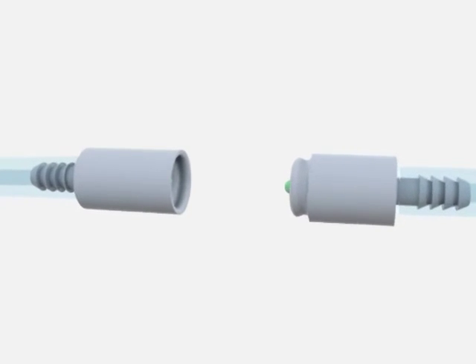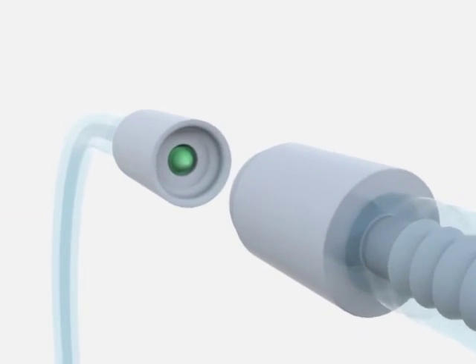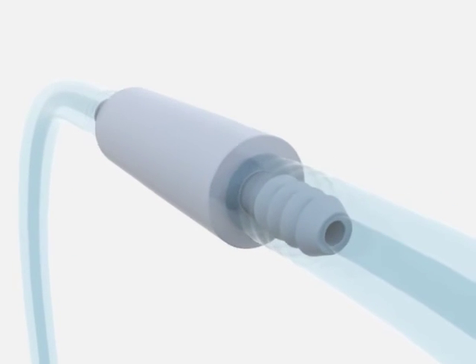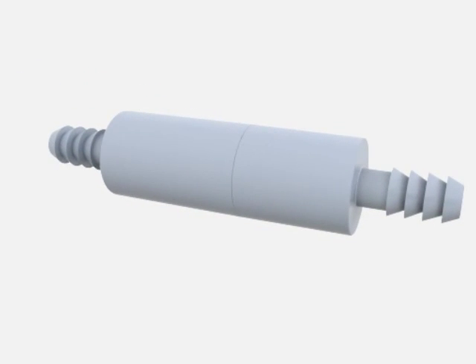Such features are envisioned to be a benefit when temporarily moving a patient or when a patient intentionally or unintentionally takes anything out of the tubing.